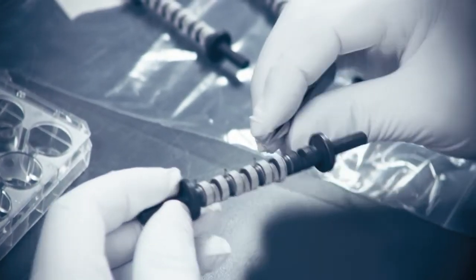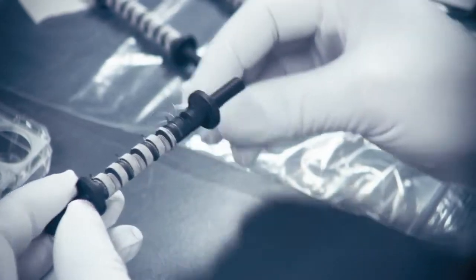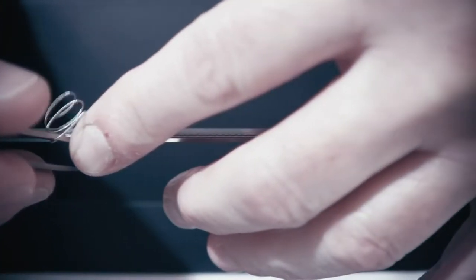Built using a platinum alloy, each coil undergoes primary and secondary winding to ensure the correct radial strength.